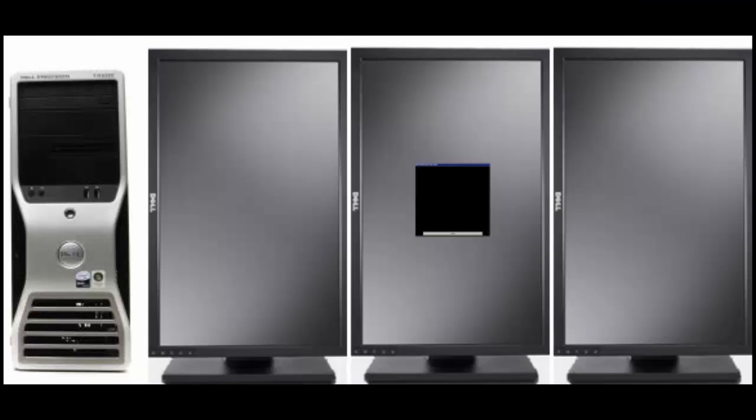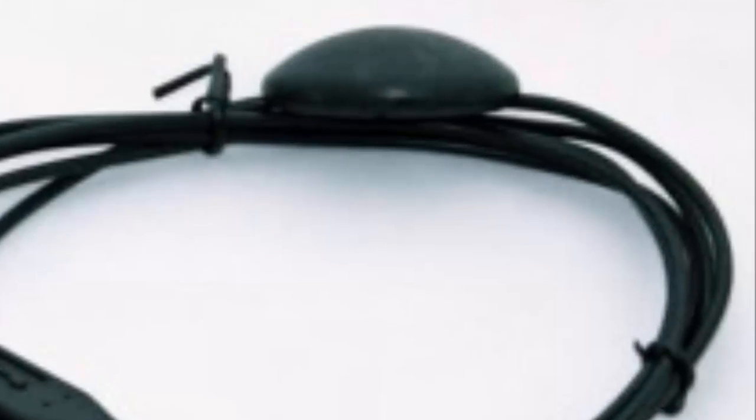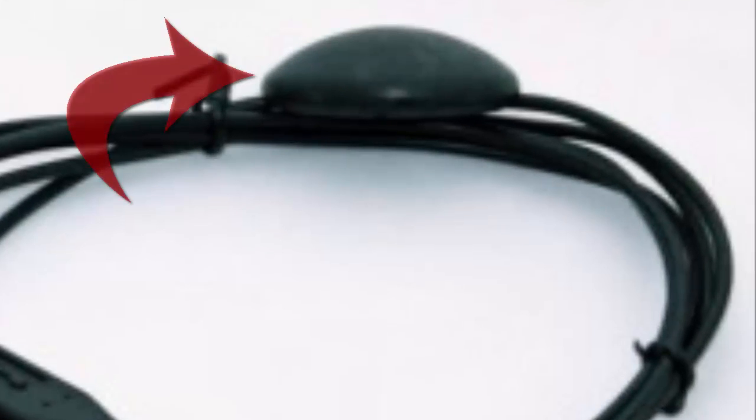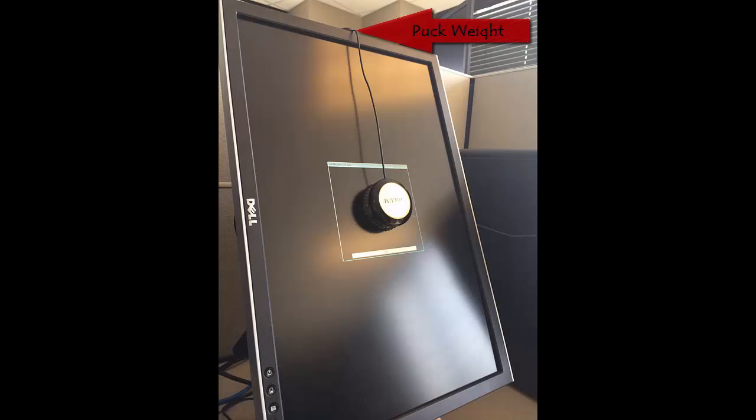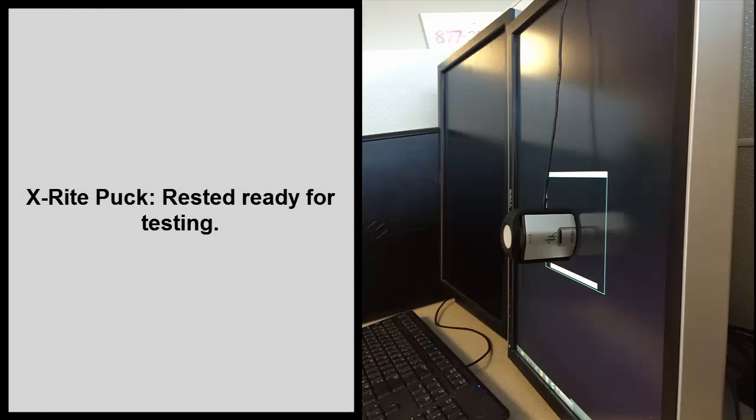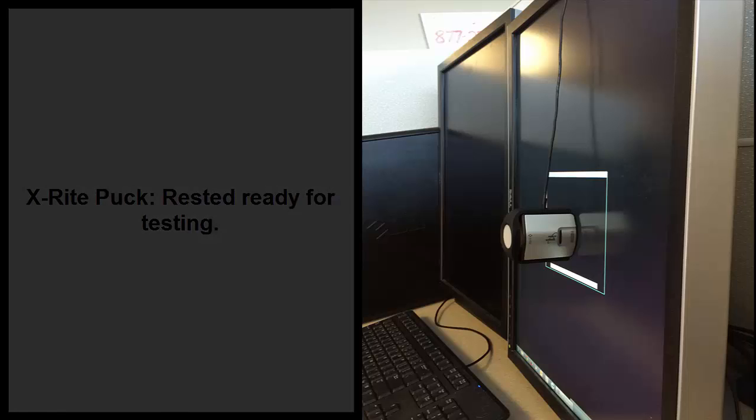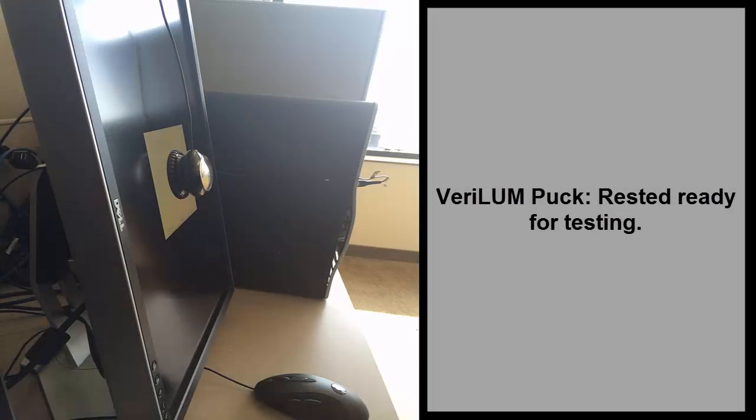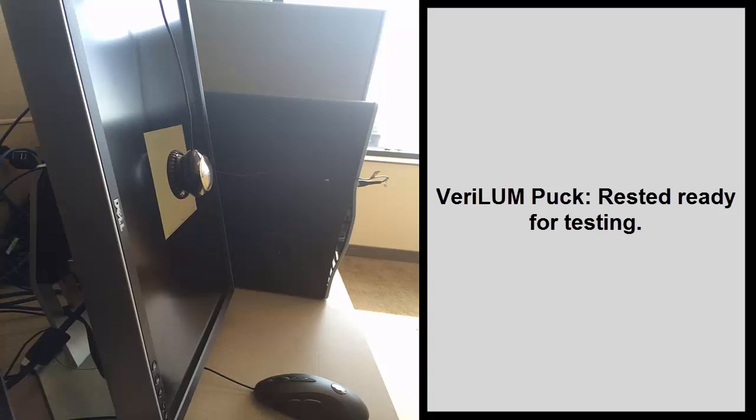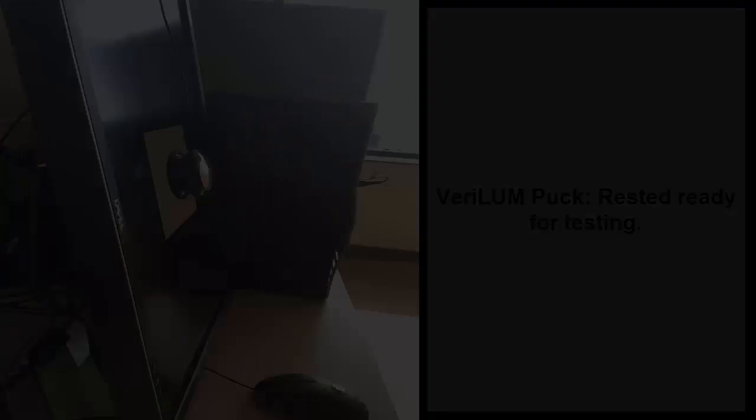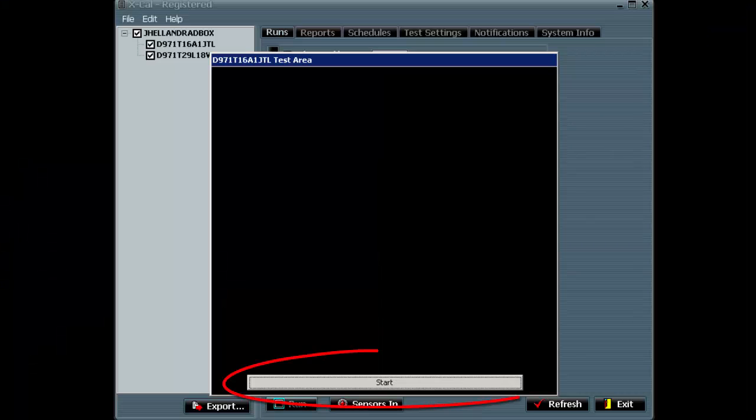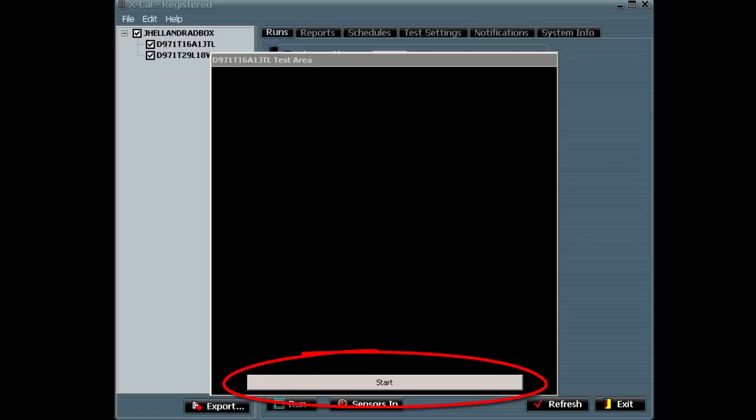We see a testing square appear on our first reading monitor. Each puck has a small puck weight included, which can slide down the puck's cable to the desired position, which is directly on top of the monitor. You'll need to tilt the monitor backwards so that the puck sits flat on the monitor into the middle of the testing square. When you're happy with placement of the puck, click the Start button at the bottom of the testing square to begin the test.